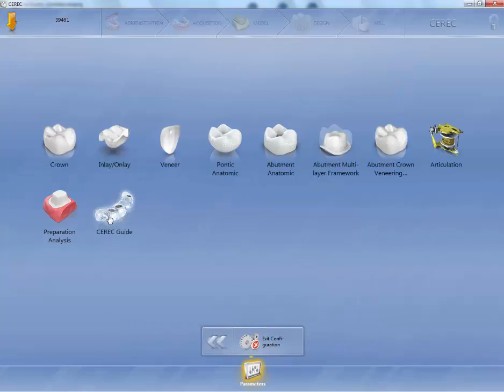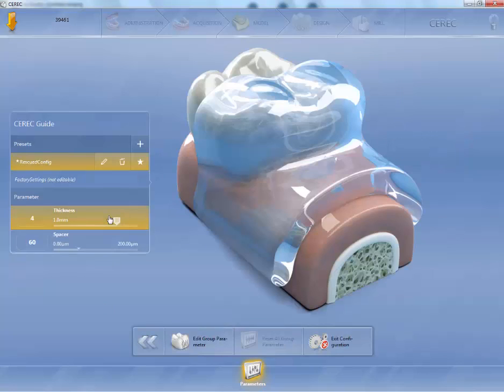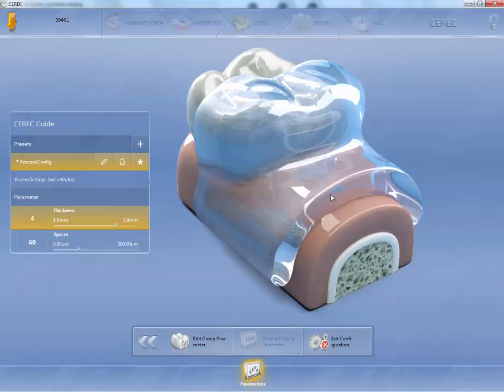And we'll go back. And then the CEREC guide. Again, all these parameters are going to be the thicknesses for the guides. And you'll only be using this if you're going to mill a CEREC guide. OK. So we're going to go back.